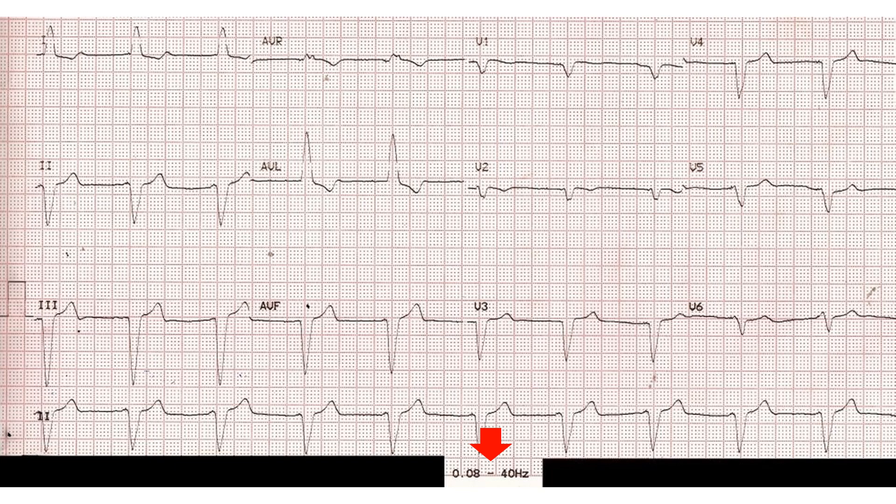Pacemaker spikes, being a high frequency signal, are effectively filtered out by the above filter settings. Hence, the ECG is likely to be diagnosed as left bundle branch block (LBBB) at one look, though we are missing the P waves before each QRS complex, which would be expected in a simple LBBB with sinus rhythm.